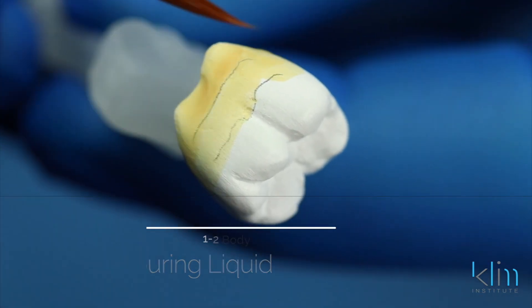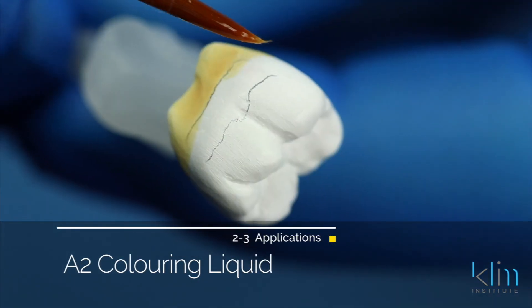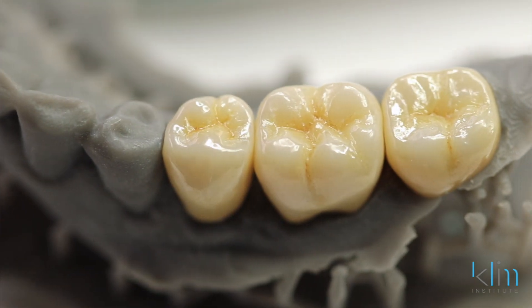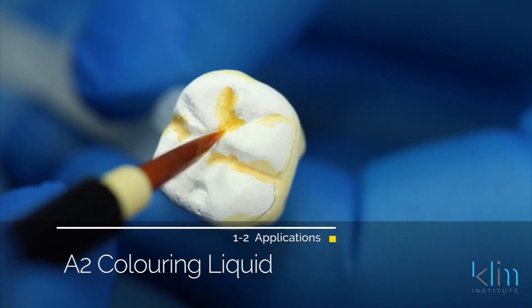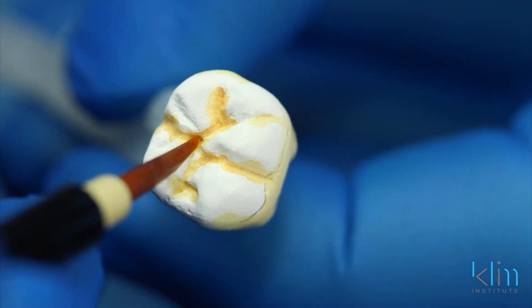The way we create a multi-effect is determined by how many applications we place per zone. For instance, on the cervical area I'll place two to three applications of that base color. Then in the body, I'll streak into the body to create a multi-gradation effect. The base colors used for the cervical zone are also used internally to tone down that cervical area and on the occlusal surface in the depths of the fissures — that will give a nice dentinal glow once it sinters.